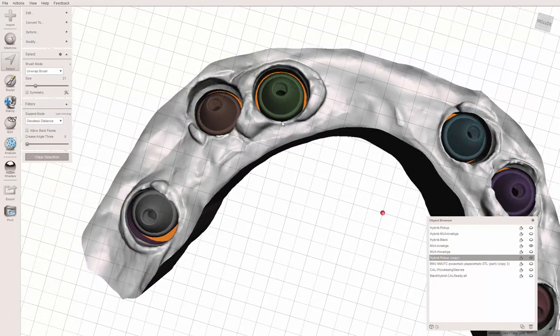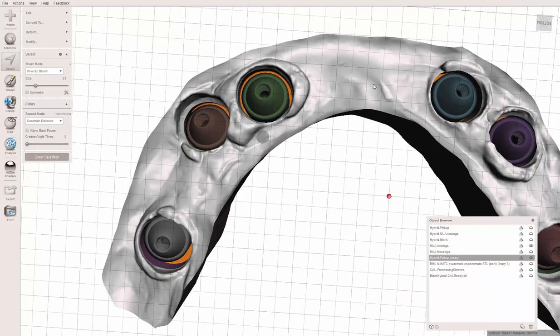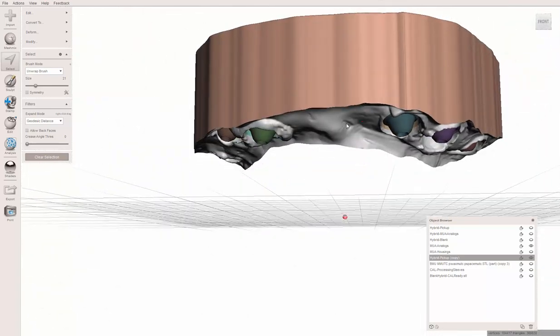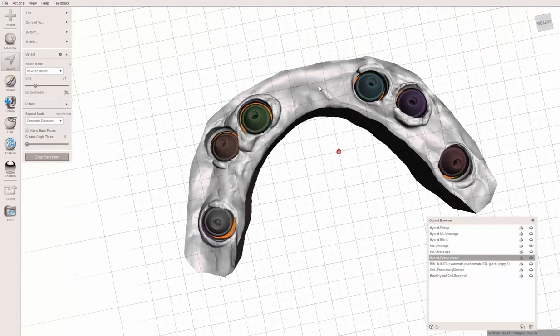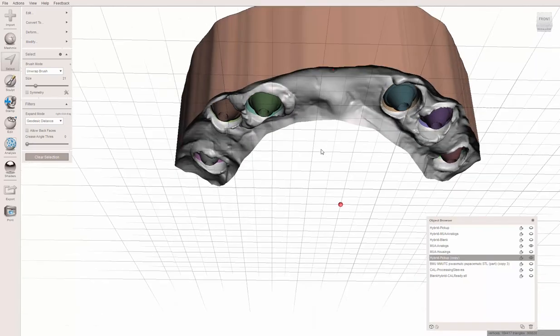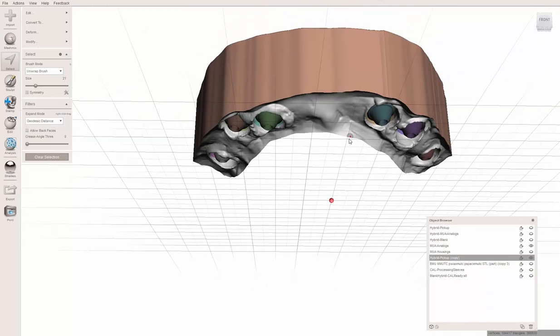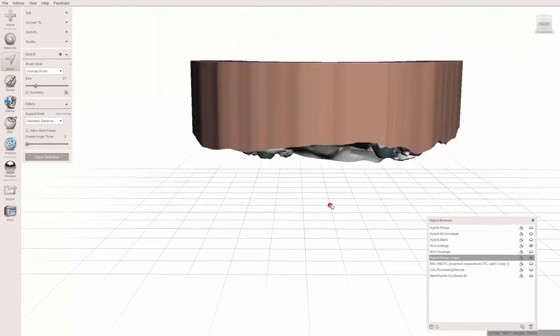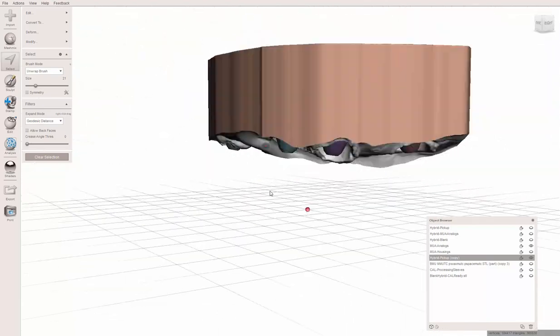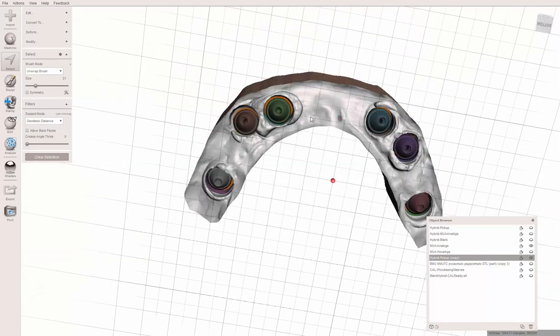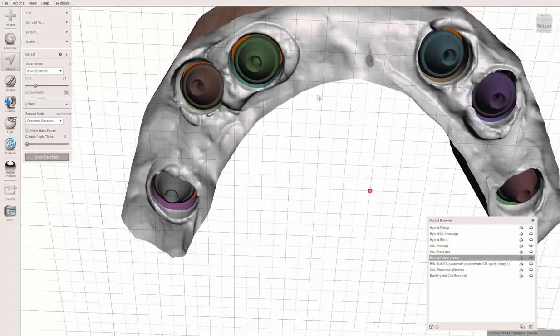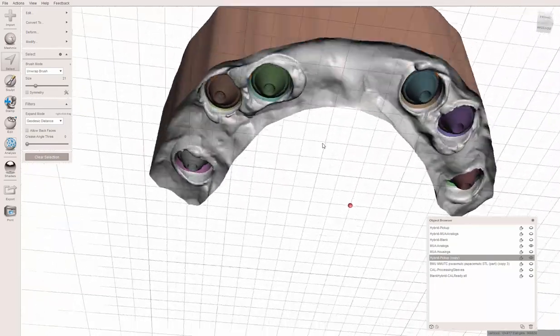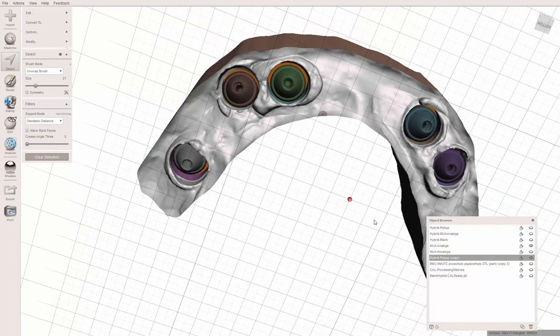You could export this model with these sticking in it, and you could build a more traditional form on top of that. For me, the purpose was that I could send this to my lab to see if it looks like it's lined up. In the second video, I can show you the Cal Technique, which actually gives you the ability to completely design a printable prosthetic for a purely passive pickup. Thanks a lot, that is the end of this video.